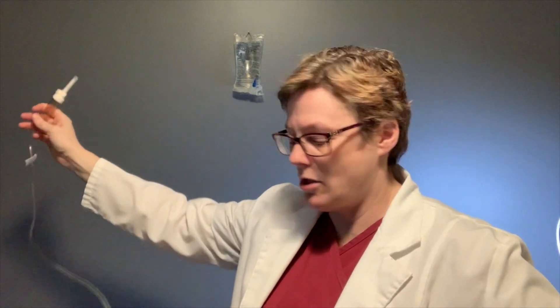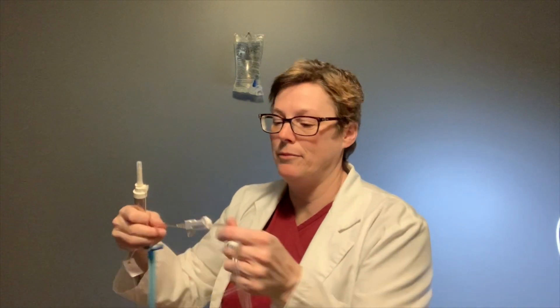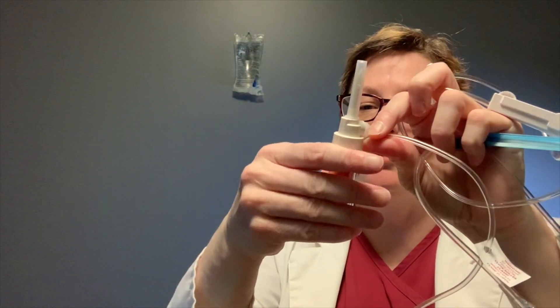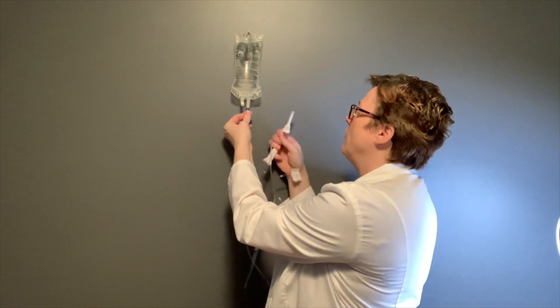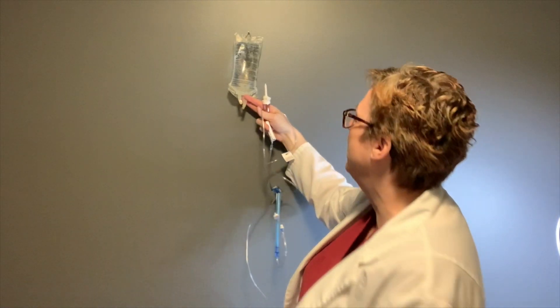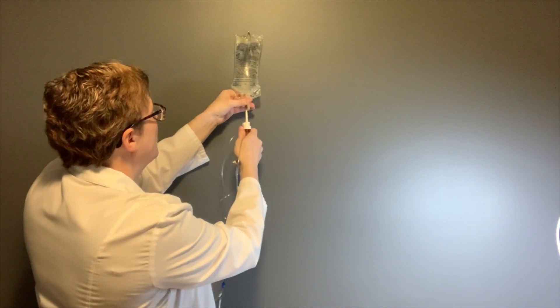I'm also going to remove all these pieces of paper — you're welcome to keep them on, that's not a problem — and stretch out my line. The second thing I'm going to do is hold up my IV line and create a second clamp by holding it tight. We're going to remove the blue sheath from the fluid, making sure it doesn't touch anything, then remove the protective sheath on the IV line, and spike the bag.